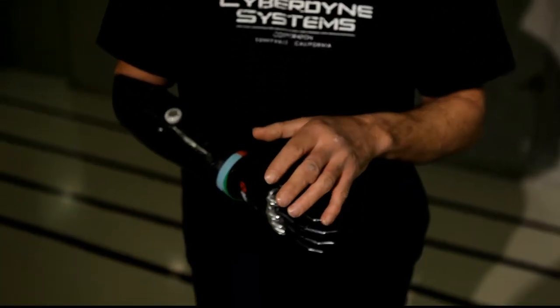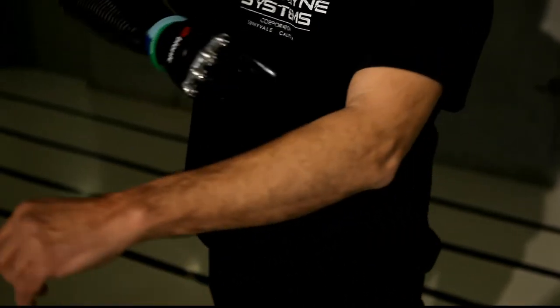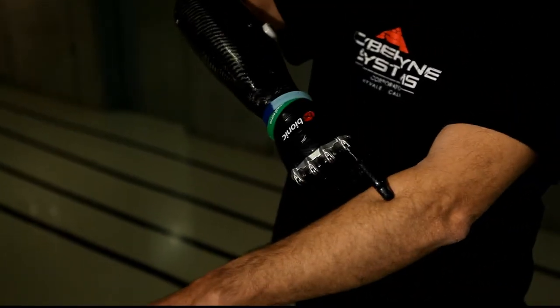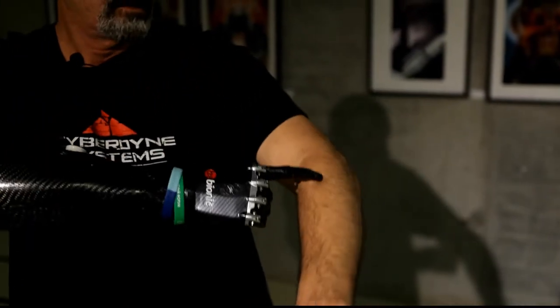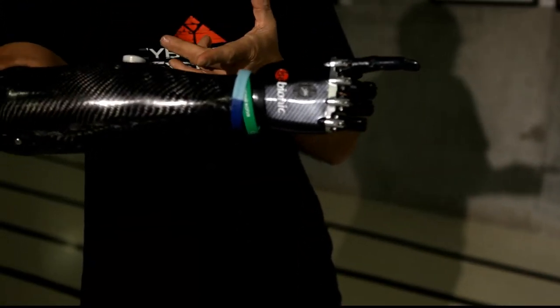So which muscle do you use for operating with the hand? Very, very simple — I just use two muscles. I use on this arm the muscle here and the muscle here. If I contract this muscle by doing this movement, the hand will open.